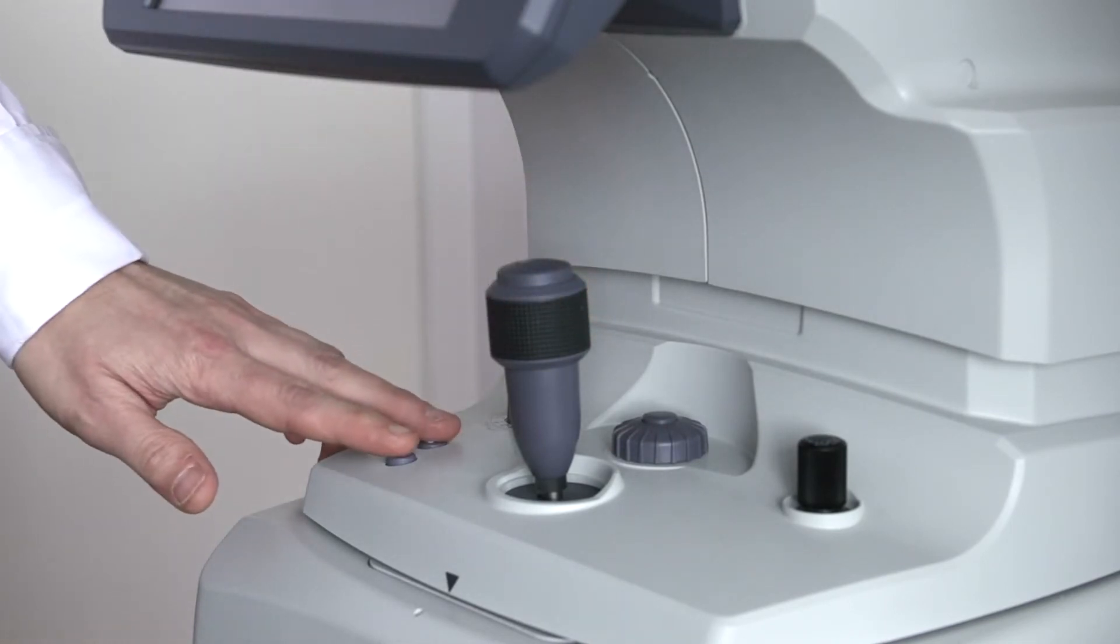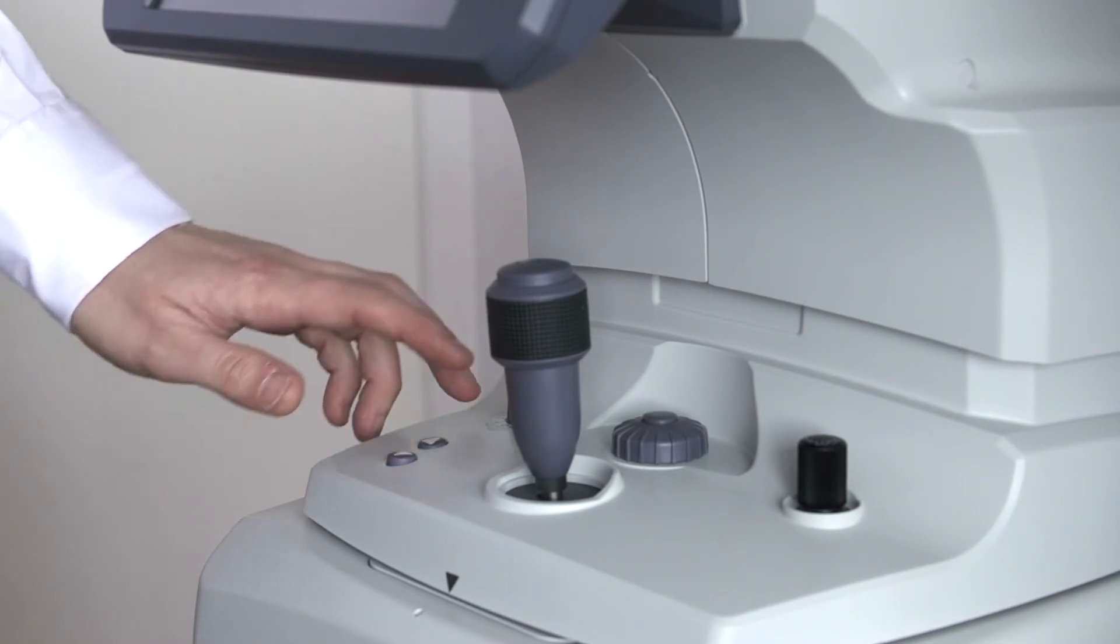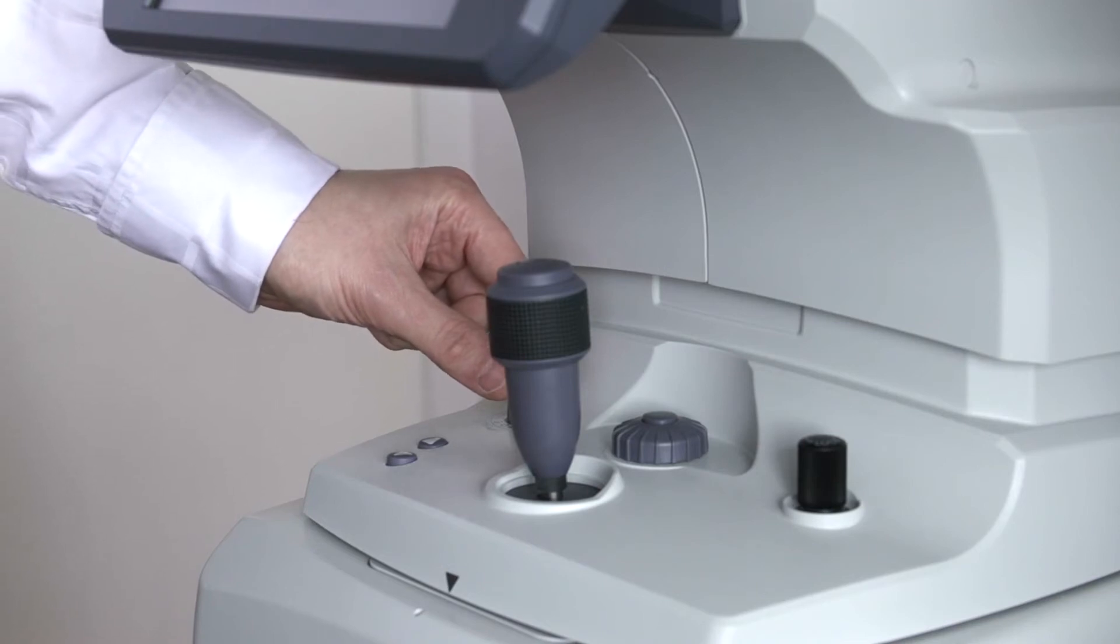We also have the chin rest adjustment buttons here to move the chin rest up and down. We have the internal observation illumination button.